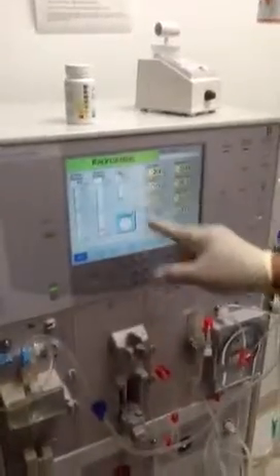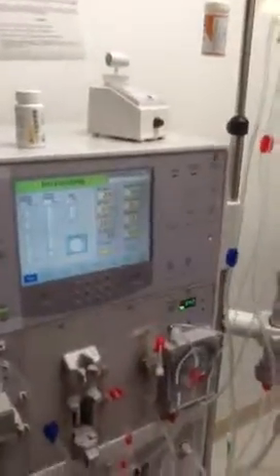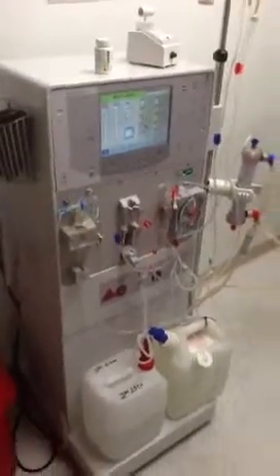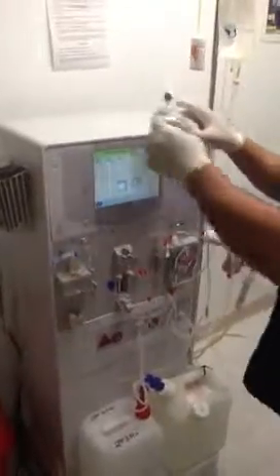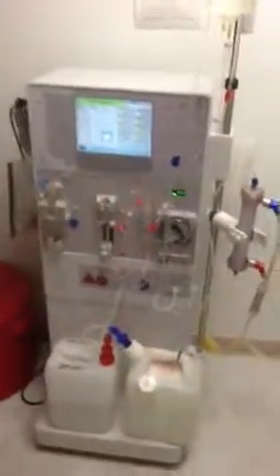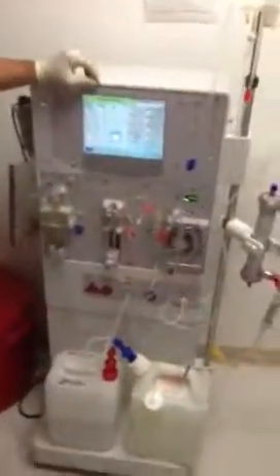Make sure you see it's saying recirculating and these numbers are counting up. Once it reaches a goal of 200, it's done. You can hit override or hold reset — either works, but override opens up bigger. This part here is messed up, that's why it was disconnected — it would obviously be connected normally. That's the end — leaving it at recirculation, and we'll continue with the rest after it's finished recirculating.